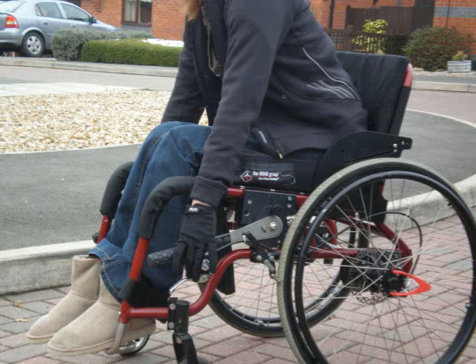This reduces the inherent health problems of back, breathing, digestion, compression of internal organs and also balance. The Wilgo wheelchair handles have an automatic lockdown facility at around 120 degrees, which allows easy transfer to and from the wheelchair.